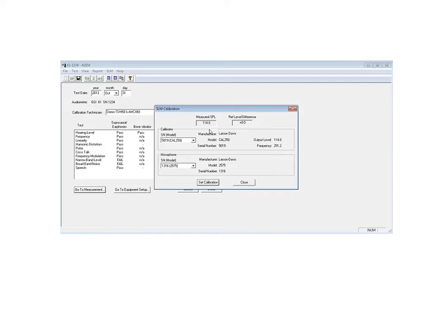Typically this equipment is very close within a few tenths of a dB day to day, day after day. It's very impressive that it can hold those kinds of stability with the acoustics.